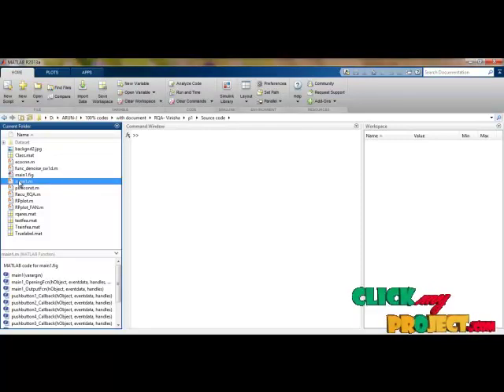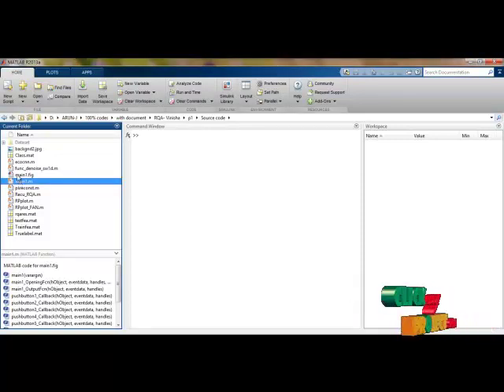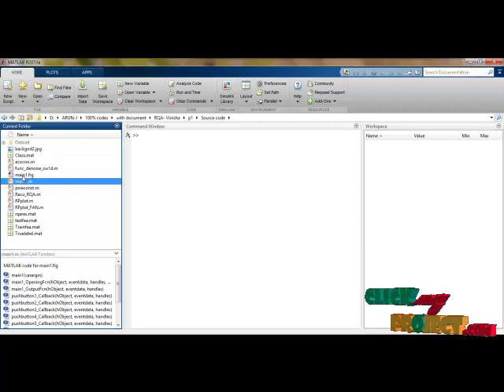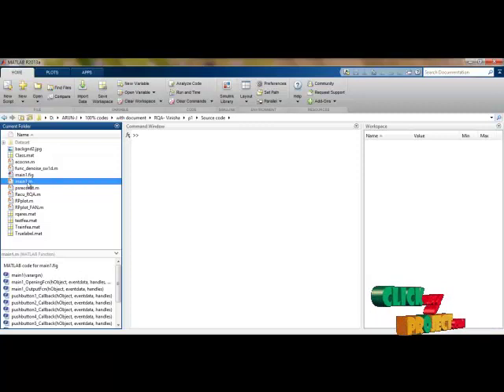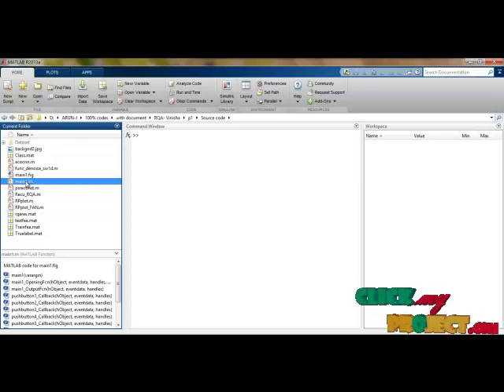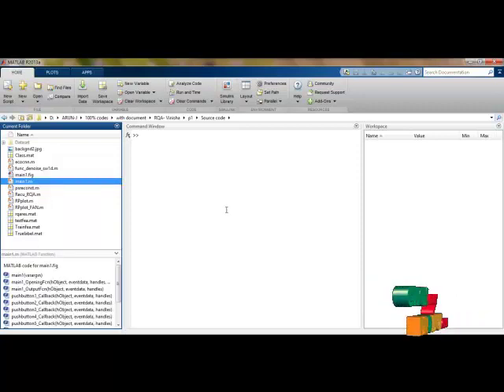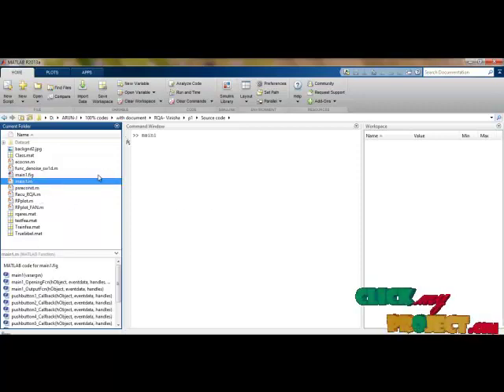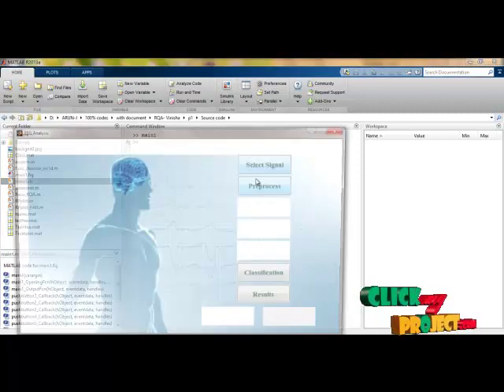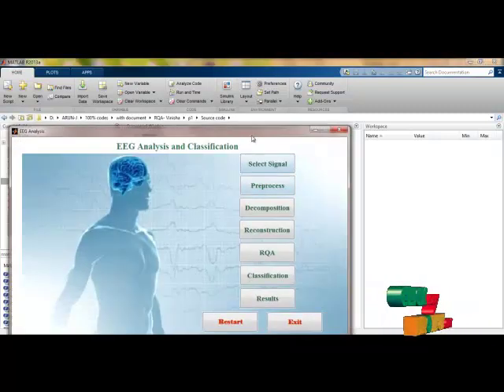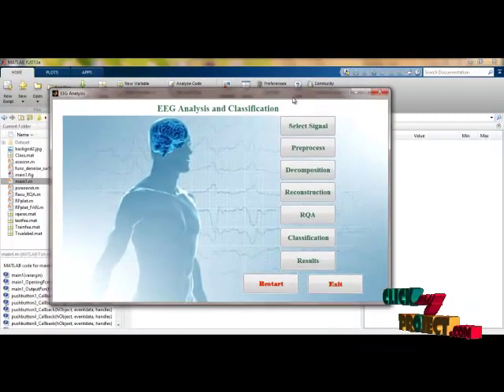The main1.m and main1.fig files share the same name because main1.fig is the corresponding GUI file. When you run main1.m it recalls the main1.fig, which is the GUI frame — that is the main frame of our process. Let us run main1.m and it recalls the main1.fig — that is the GUI design and the main frame.